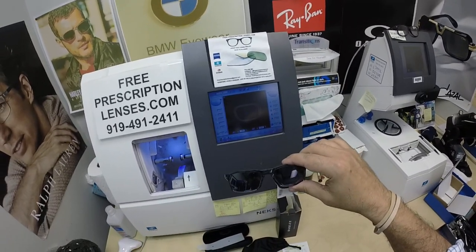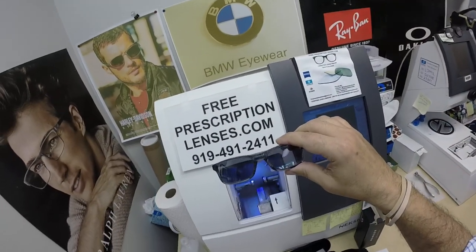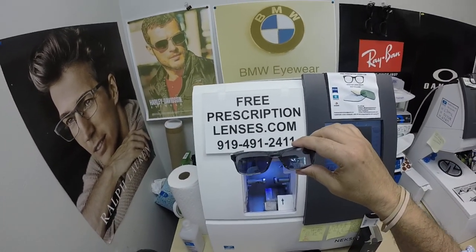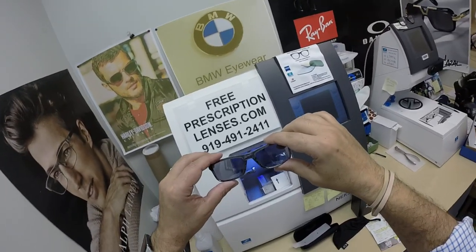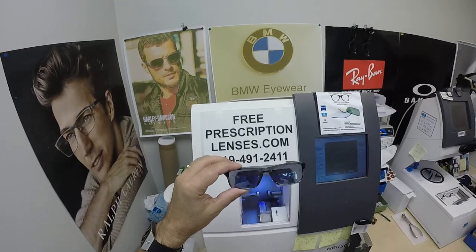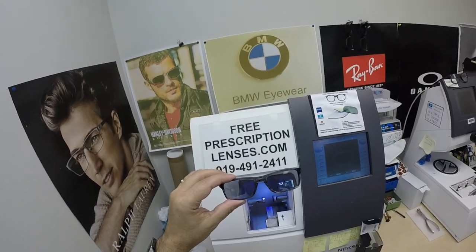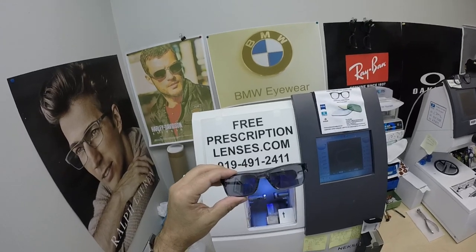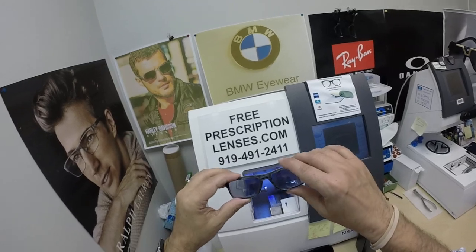The other nice thing about all photochromic lenses: they were the very first blue blocking lenses that you hear being discussed nowadays. The Zeiss Photofusion Gray, Brown, Green, or Blue at $99 blocks 30% to 50% of the harmful blue light. These Zeiss Photofusion Extra Gray block 50% to 70% of the harmful blue light emitted from today's electronic devices.